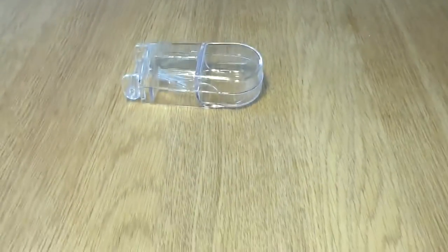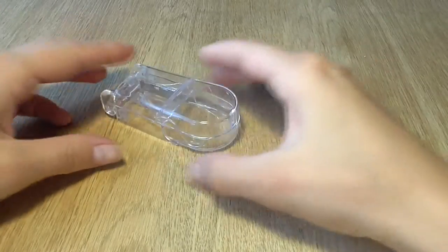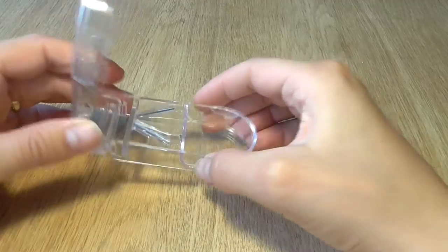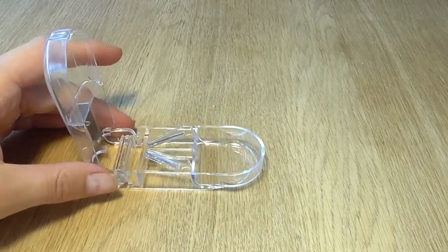That's right, there is a device that makes your life more comfortable if you need to split pills frequently. But does this thing really work? Let's test it out.